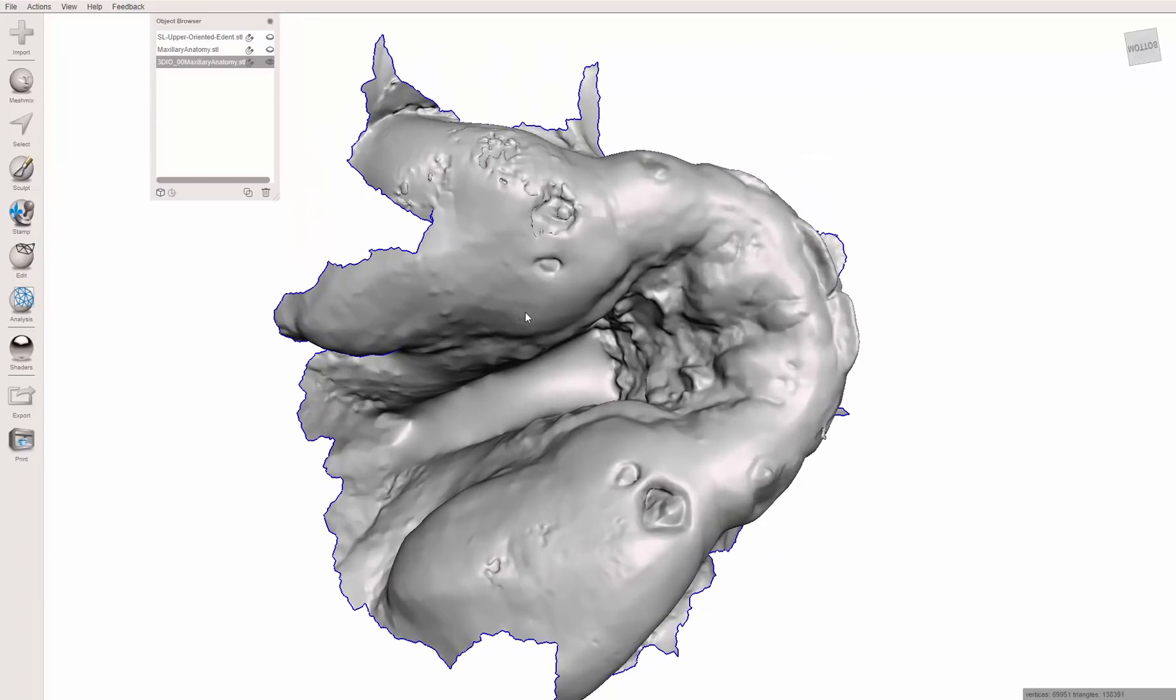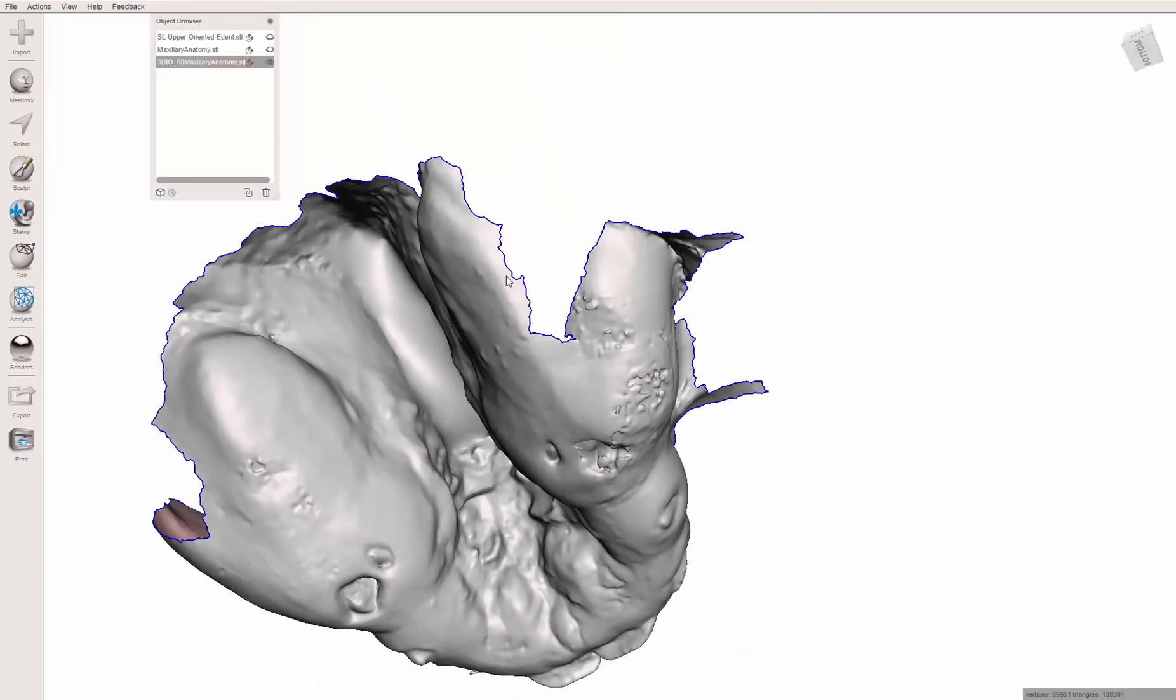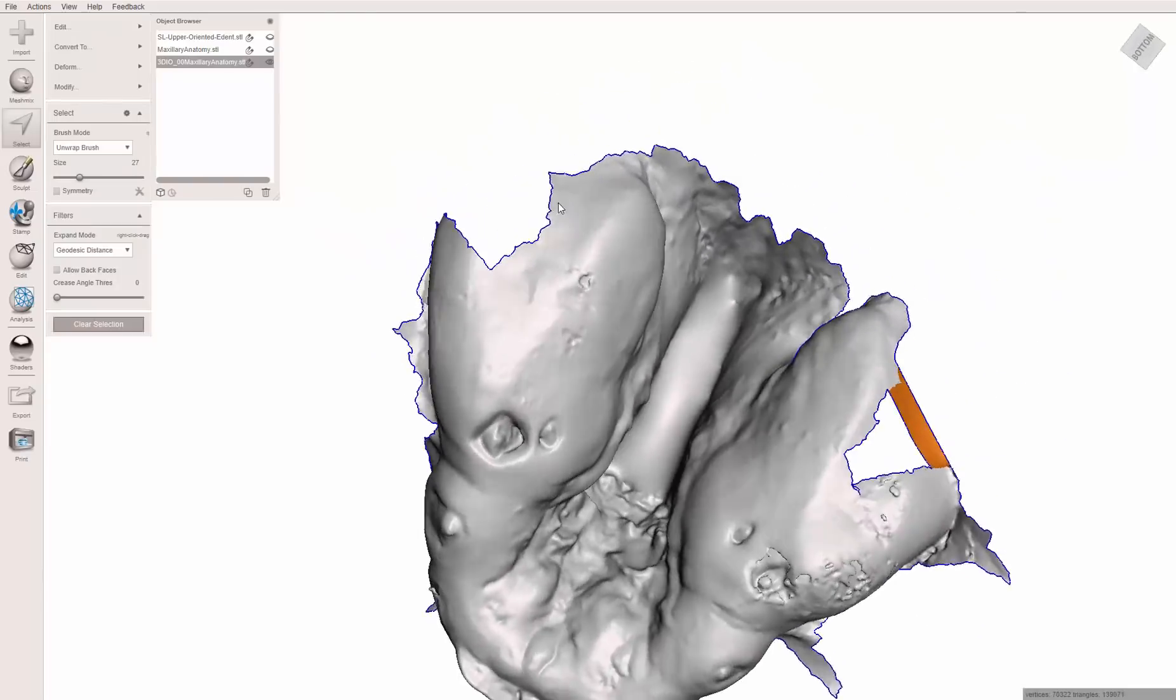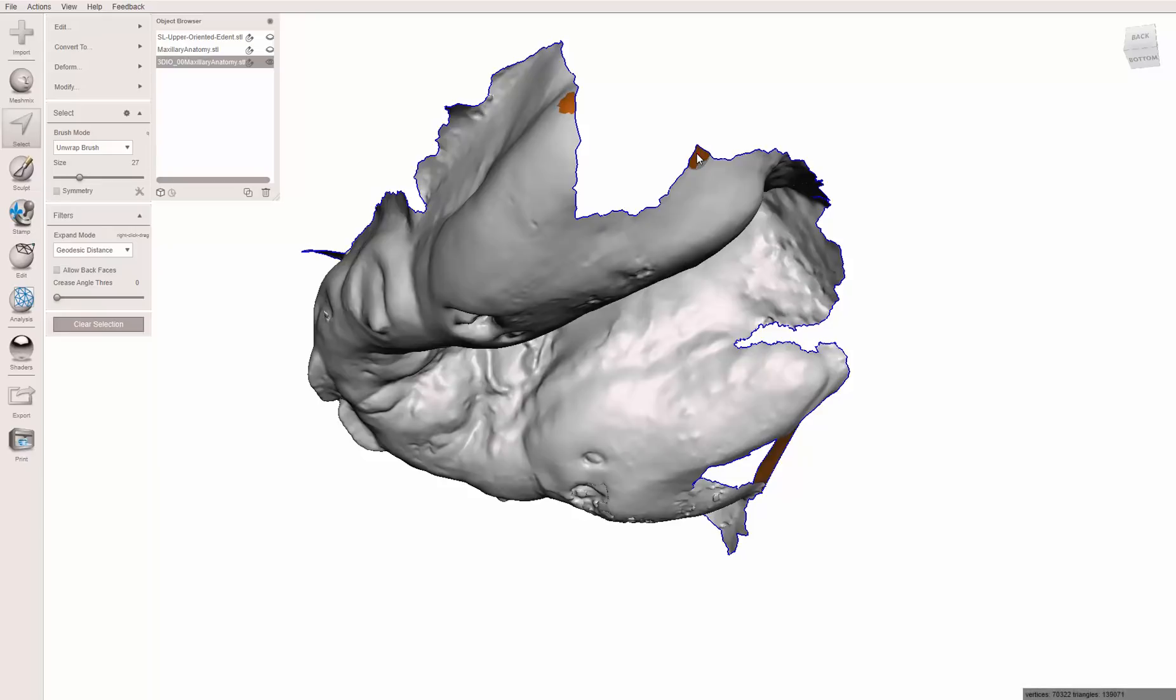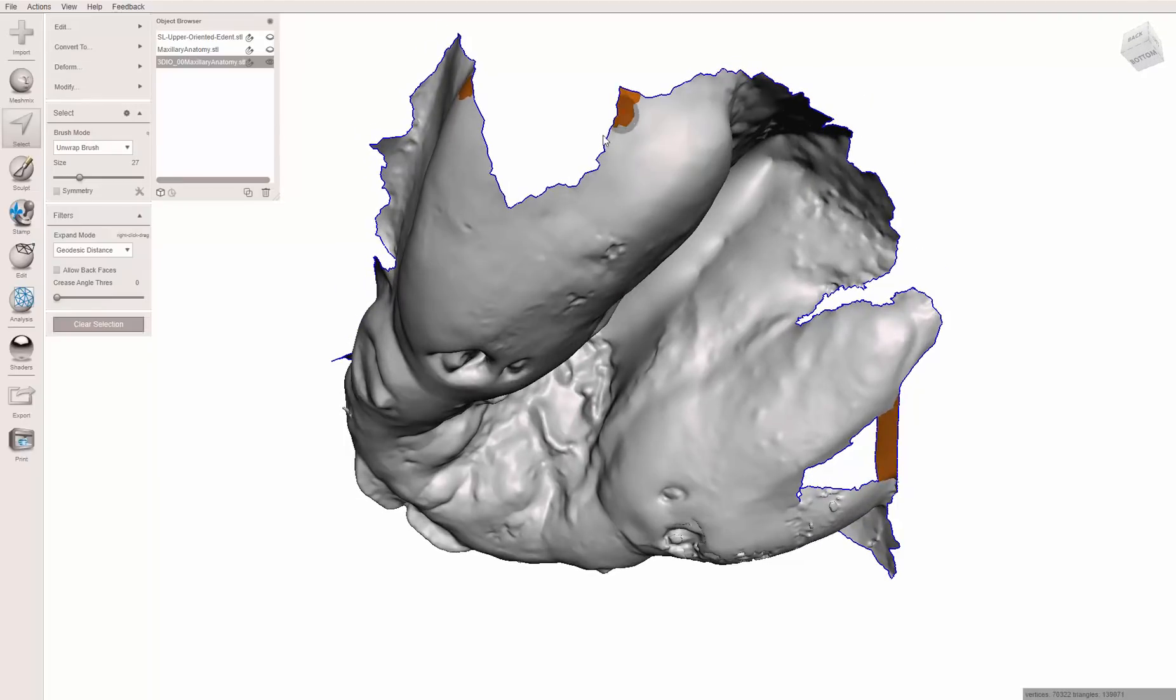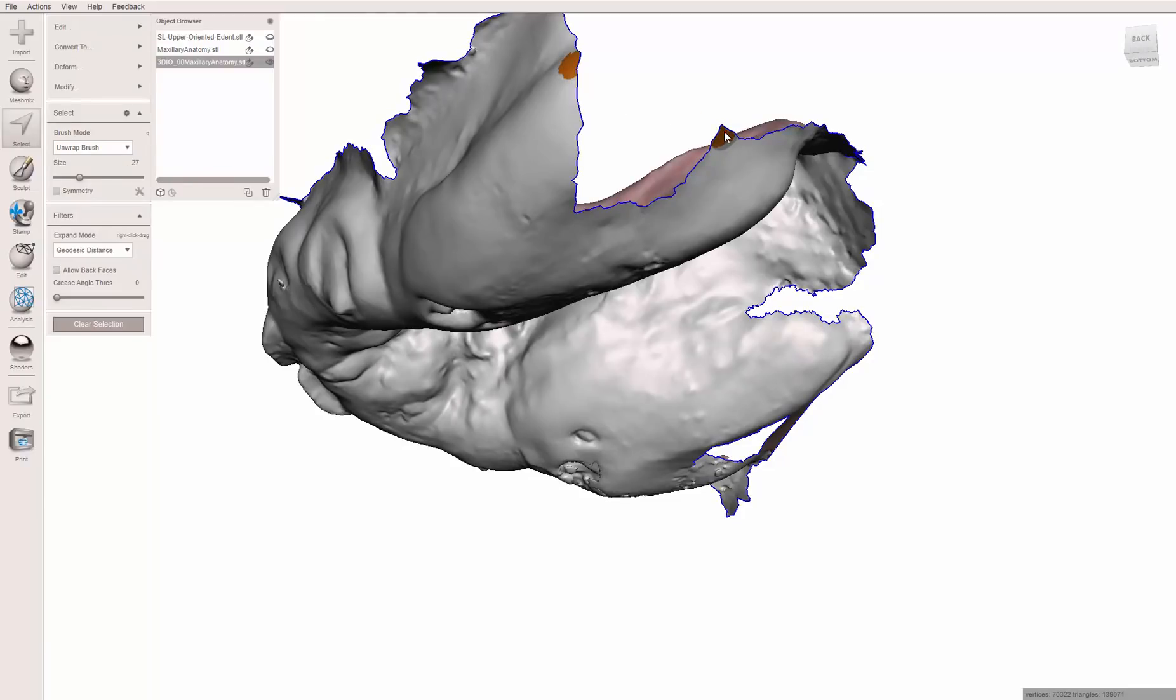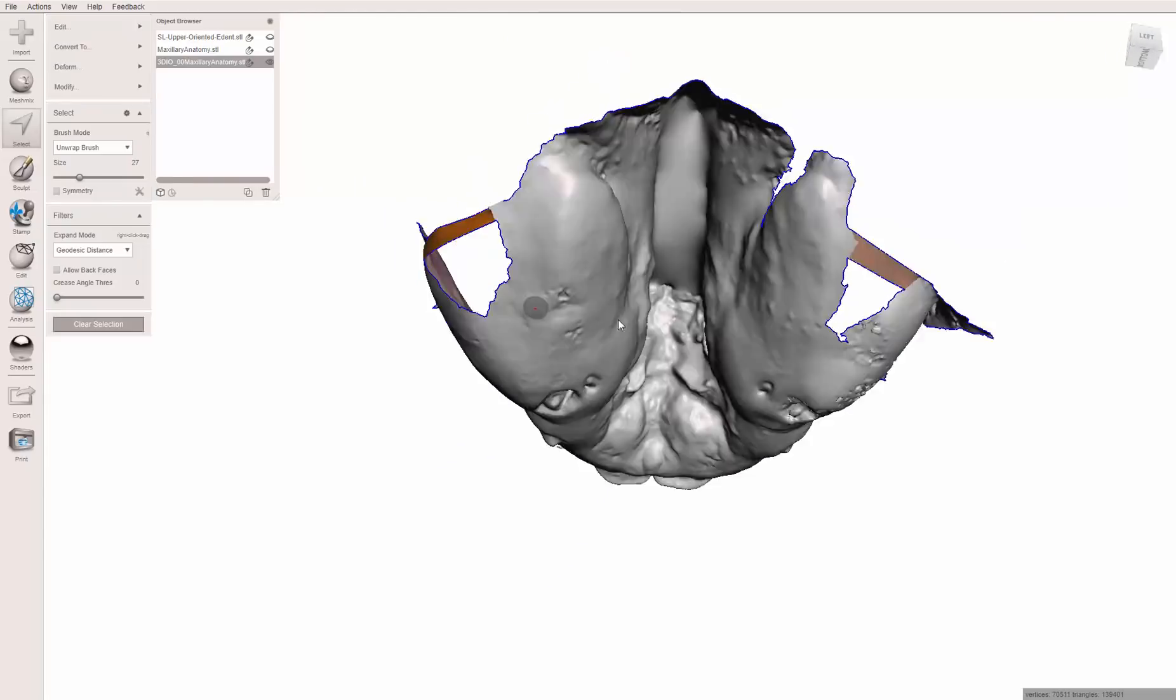So what I did here, and thank you so much to Nathan Farley for showing me this tool, because without this, I would never have been able to accomplish this. Control B, hit accept. Control B. Oh, it's because I still have this tool, this area over here selected. It can't bridge all the way from there to there. Control B. OK. Accept.